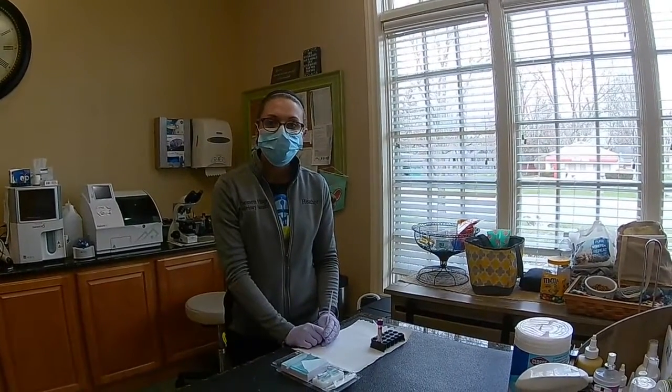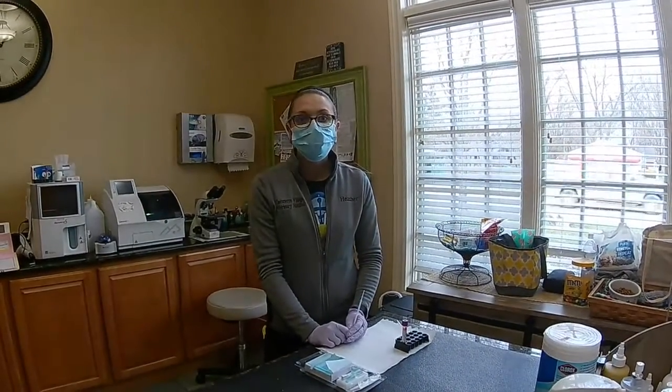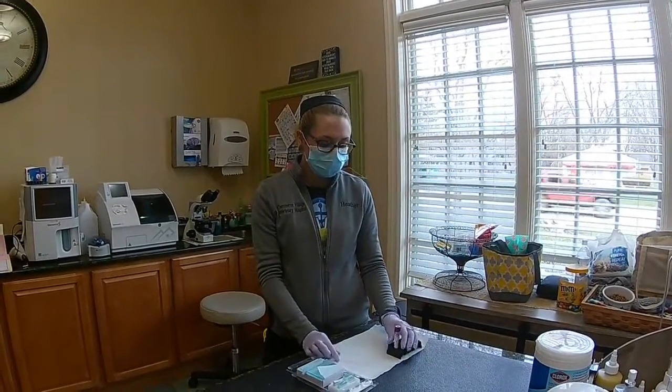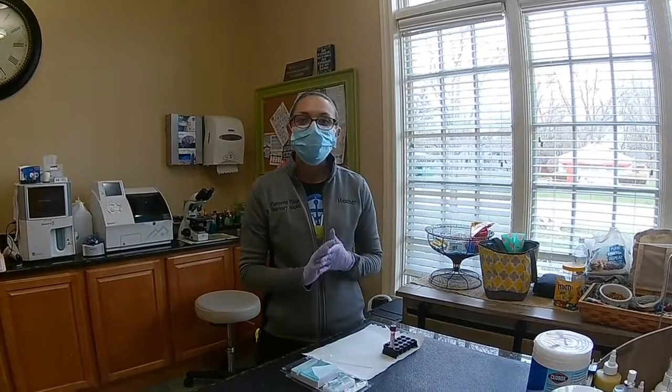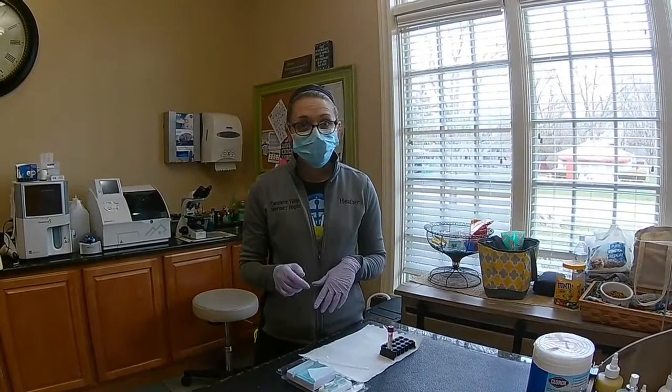Hi, Heather Lieberman here, and in my final video I'm going to be demonstrating a direct heartworm smear. In this I'm going to be looking for microfilaria, specifically Dirofilaria immitis, which is heartworm. What I do want to keep caution for, if I were to see any microfilaria, is differentiating that from Acanthocheilonema.